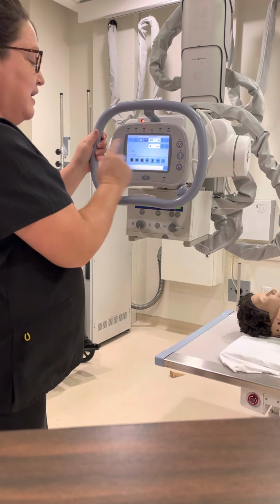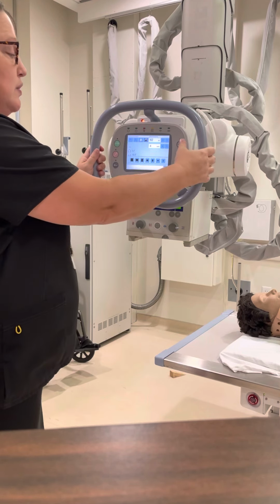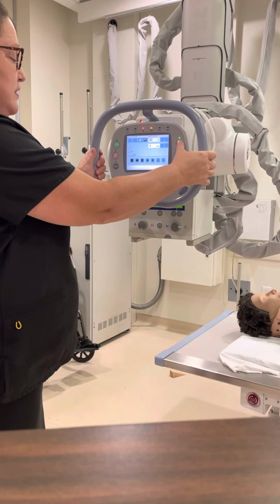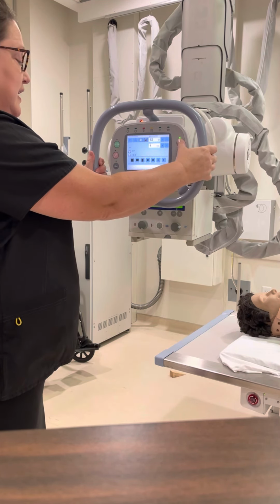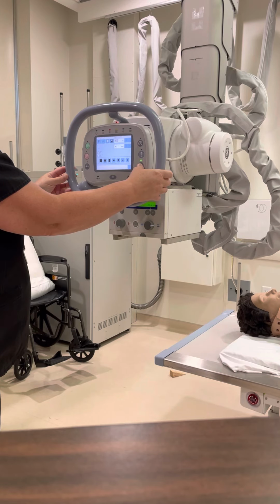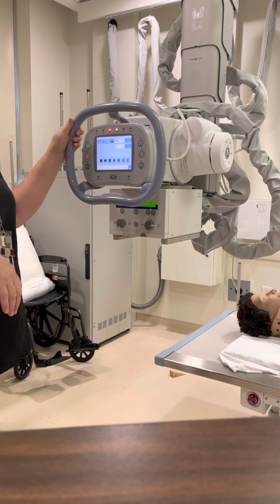Now you can see I'm not aligned to anything. So if I want it to be aligned to the table or to the wall, the first thing I have to do is get these angles correct. All right, so if I want to get it back to 0 where there's no angulation, I have a 0.1. That's within that 0.5, so that's okay. I really would like it to say 0 instead. You just kind of have to keep messing with it. And then the same for rotation. Just move it until you finally get it to that 0.0. And it's very particular, and that's why we accept the 0.5 above or below.